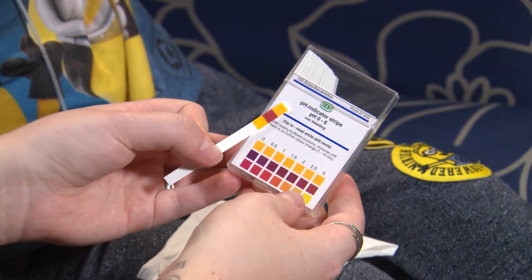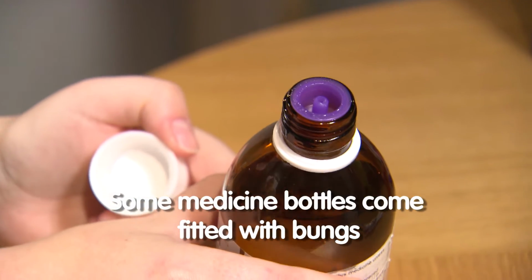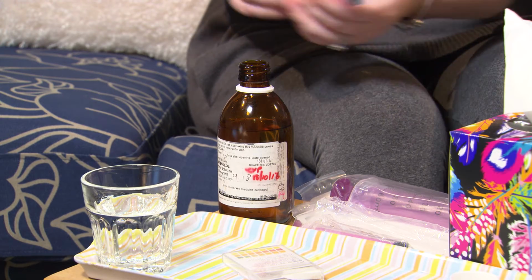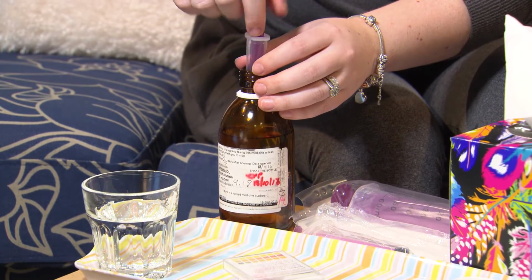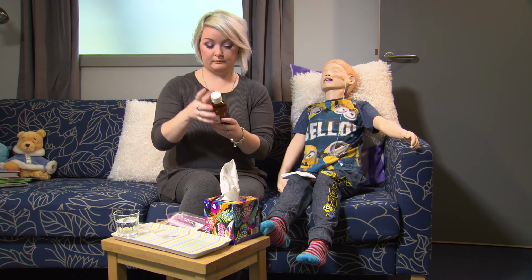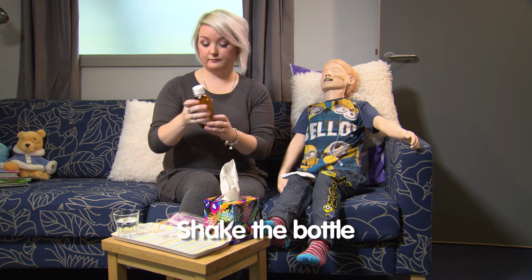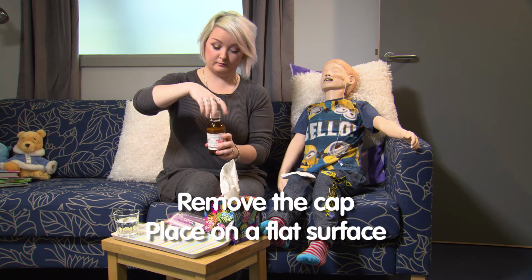Getting the dose into the syringe can be a tricky business. Some bottles come with special rubber bungs which fit into the top of the medicine bottle. In this instance, we are using a bottle without a bung and will be drawing the medicine directly from the bottle. Firstly, you need to shake the bottle well, making sure the cap is firmly on. Remove the cap and place the bottle the right way up on a flat surface.